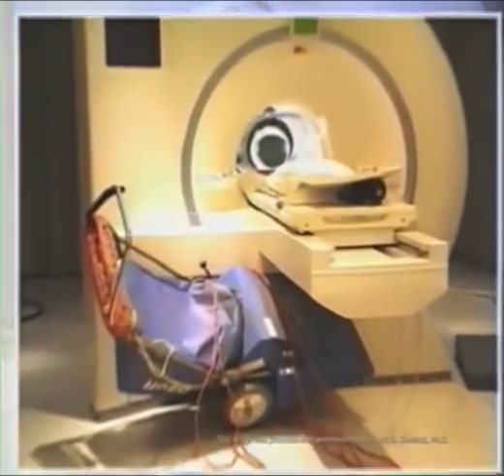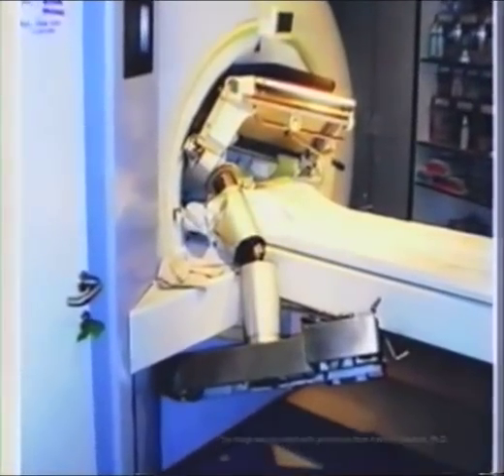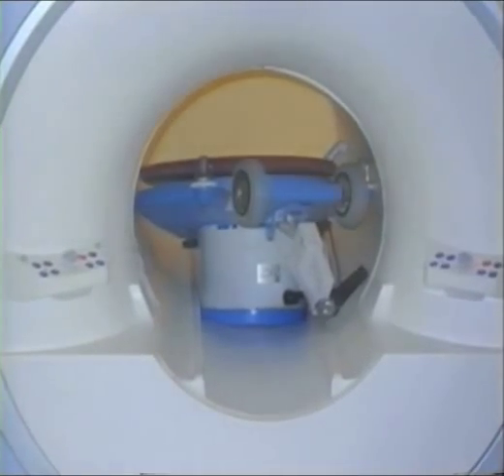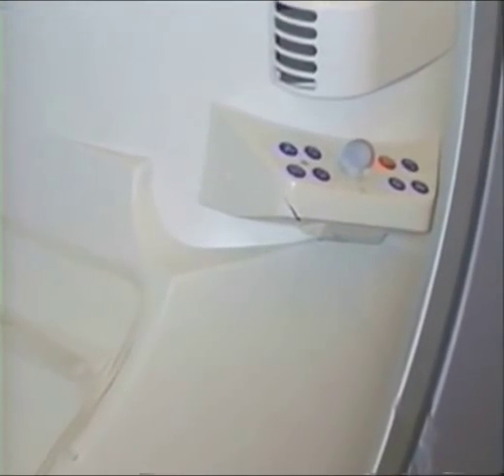This or similar accidents can also occur on your MRI system if you fail to observe the safety regulations. With our products of the Magnetom family, we put patient and staff safety first. This video provides medical personnel with an overview of the basic safety precautions to be observed when using a magnetic resonance imaging system.